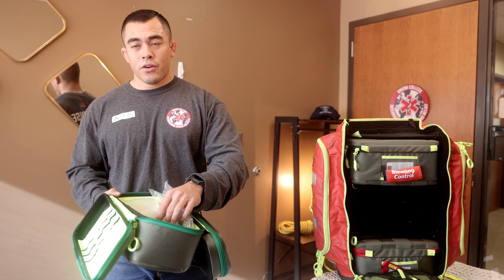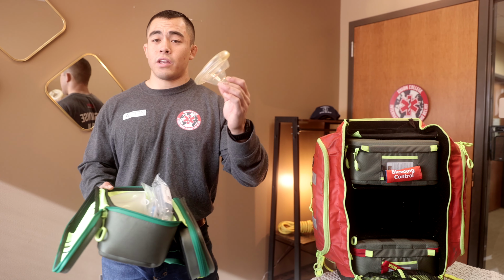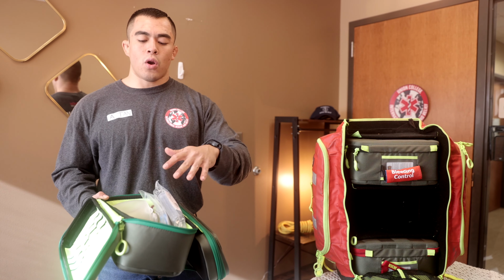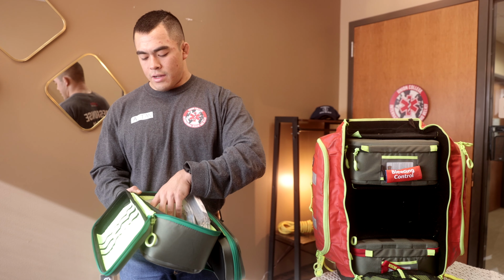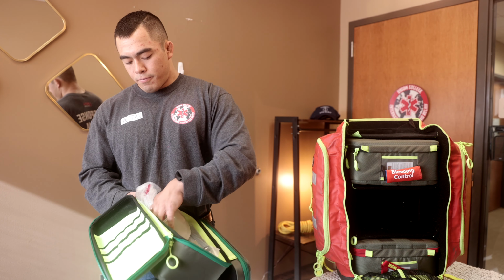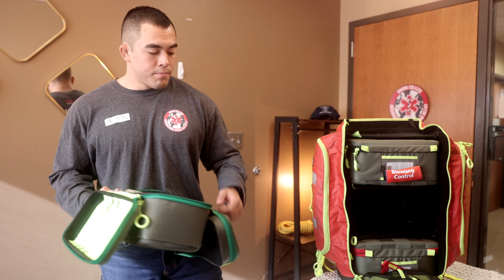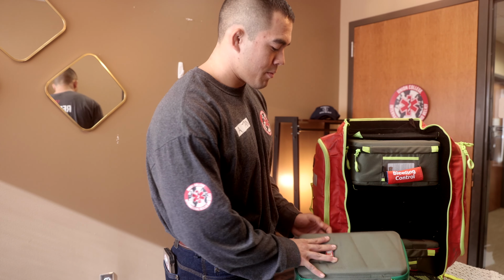We have a BVM here. We carry both the adult and the pediatric size. This one just happens to have the adult. But yes, if we're going out in response, we'd like to have both. As well, we have a mobile BVM. And then some NPAs as well. So to top that off, go ahead and put this back.